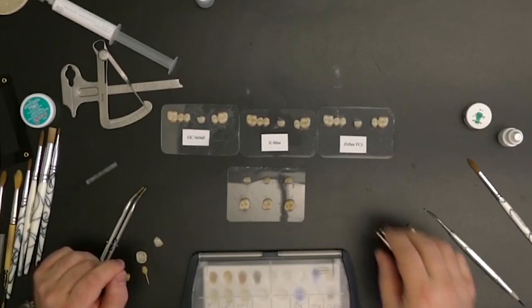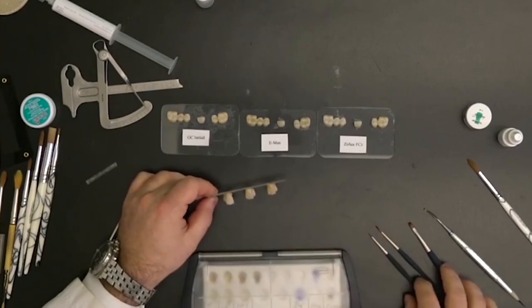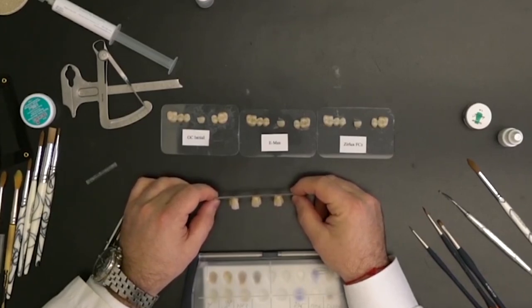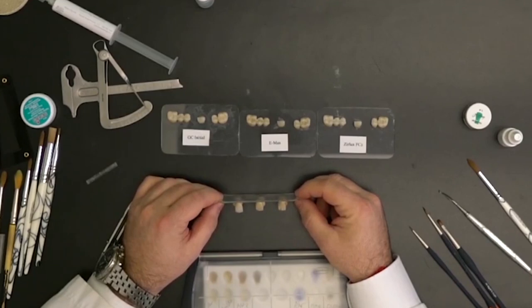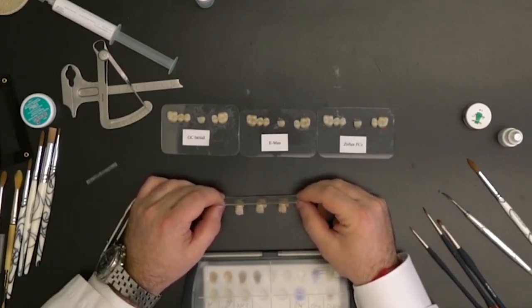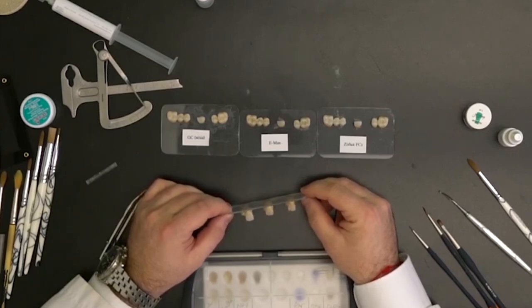Among some of the things here, you can see what I've done — this is the same Zirconia restoration, not only the same restoration but also milled out of the same STL file as well as the same puck. Having the ability to add stains in such a way really provides control of both chroma — where you want saturation in certain areas or you want it diluted in other areas — as well as value.